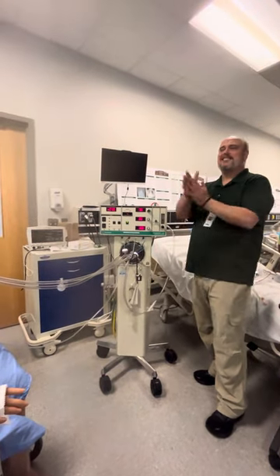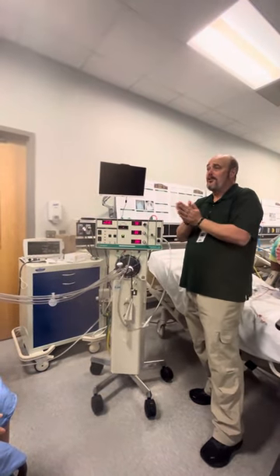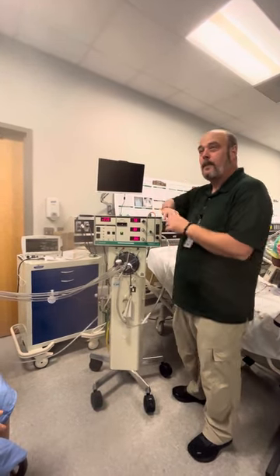Generally, you don't want excessive bias flow. But then you're having to move over here and there's no reason for it — you may actually be causing some problems. You may be putting too much in there, creating more pressure than you want. So what mean airway pressure do you want for a kid?